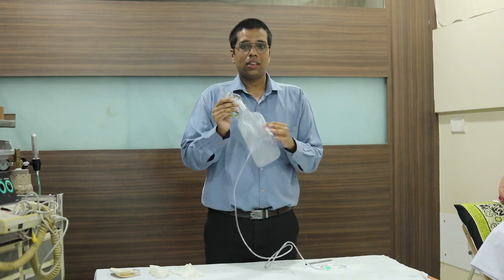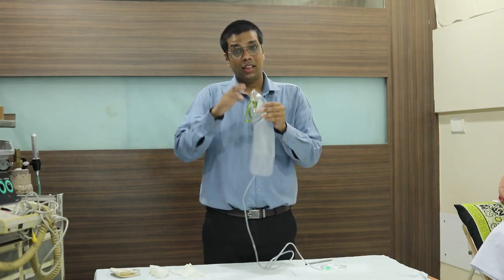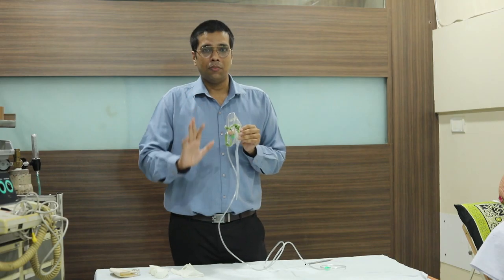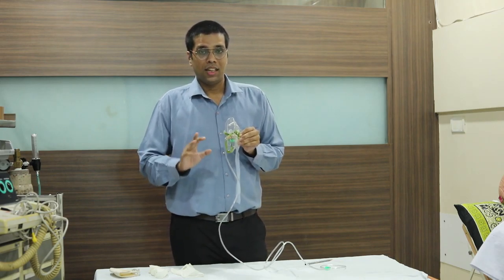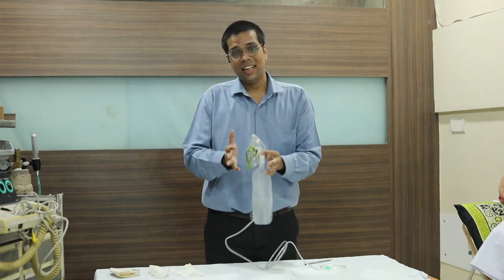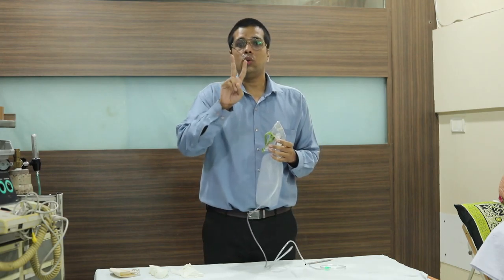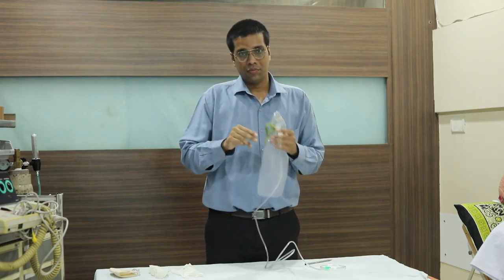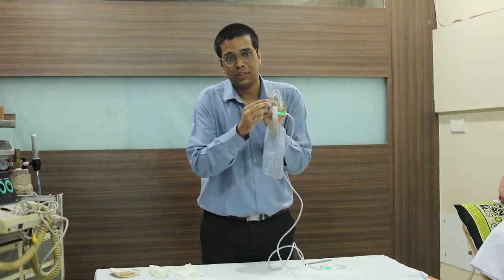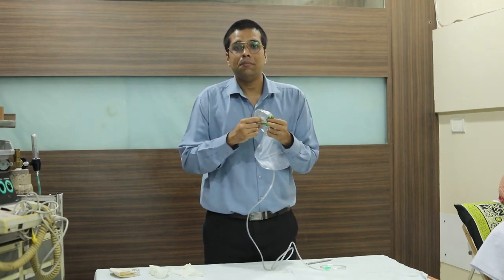In this bag, the oxygen is going to be collected. The mask is a special type. As I said, the patient should not inhale his own gas. There are two pathways: one exhalation pathway — you can see there are two flaps — and one inhalation pathway.